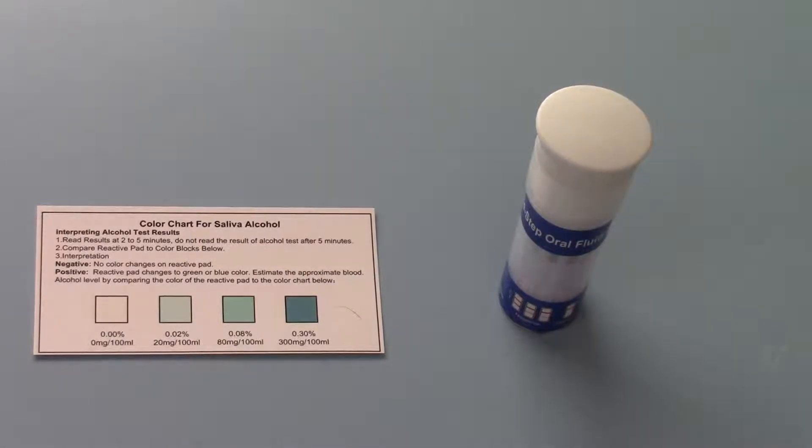Welcome back to this final part of this product demonstration of the Nobec 7-in-1 6 Drug Plus Alcohol Saliva Barrel Test. We're going to show you the results now.